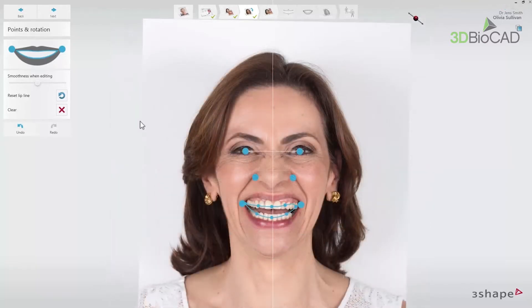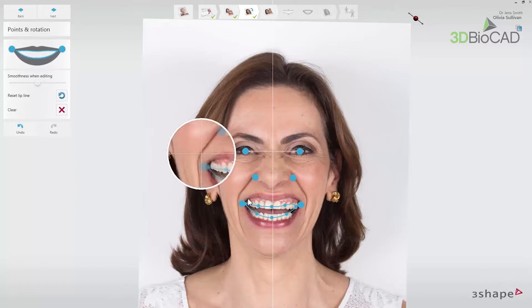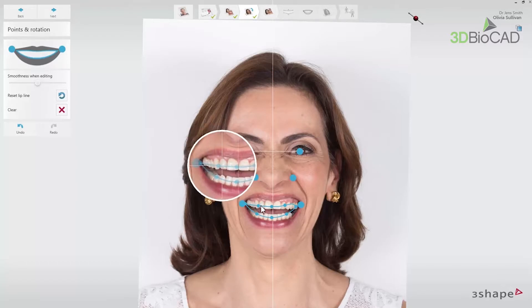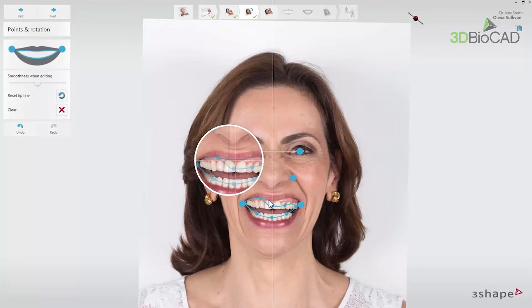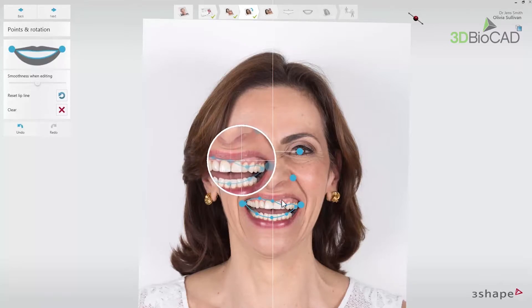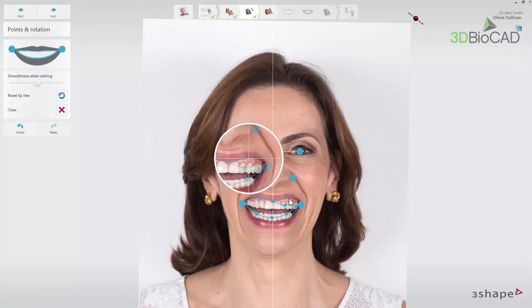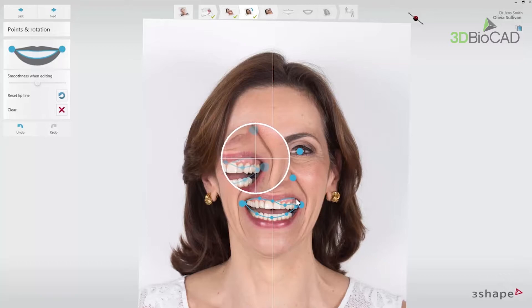When the photo is balanced, there is a blue line to mark the lip line. That line will be used later on to create shadowing on the design. The placement of the lip line can be done by dragging the control points, clicking the points on the picture, or by drawing the line on the picture. The magnifier can also be used at that step.